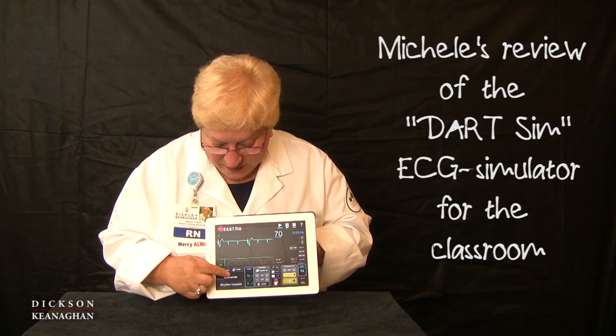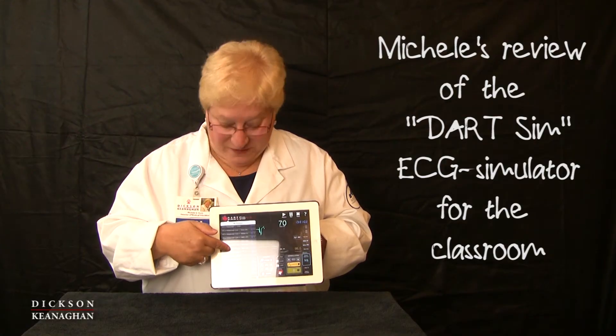Another option on here is scenarios. It comes up with a whole list and their website is very helpful — Dart Sim tells you all about scenarios. You can add and make your own scenarios, which isn't that difficult to do. It goes from ACLS into pediatric advanced life support and even NRP scenarios, so it's fully loaded to help you in any of your classes.